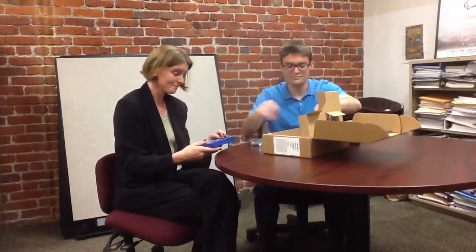The surface area on the top is about the size of a dollar bill, which is remarkably small. It doesn't quite fit in my pocket, I would think. Let's see, we'll try. Not so much in the pocket. However, it has the ability — you can take notes on it, just like you're writing Braille. It has eight dots for creating Braille, a space bar, backspace. So you can take notes just like a traditional note-taker.